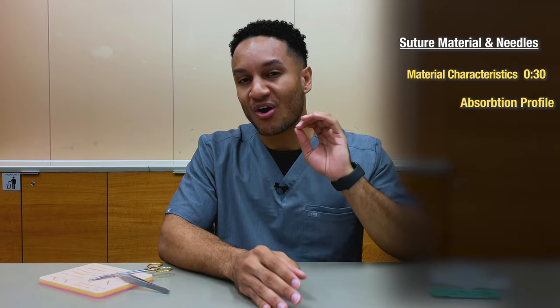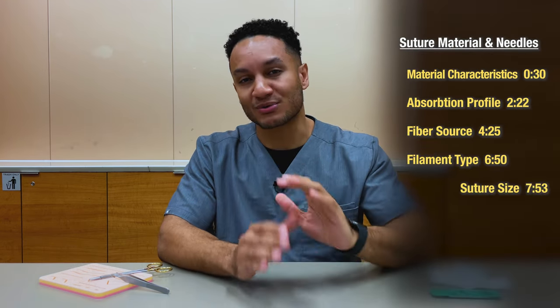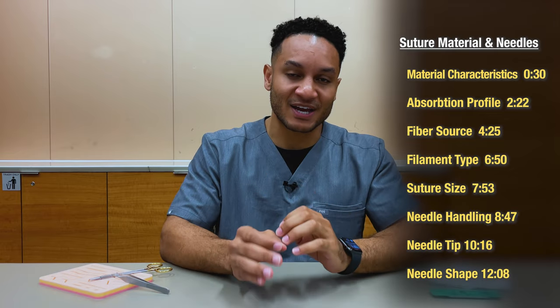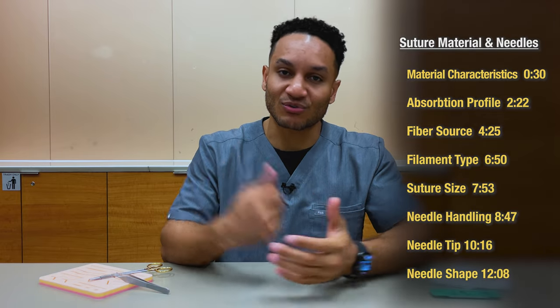My name is Dr. Jordan Kai-Simmons and I'm a head and neck surgery resident out of Los Angeles, California, and today I want to teach you all about suture material and needle types, so let's get right into it.